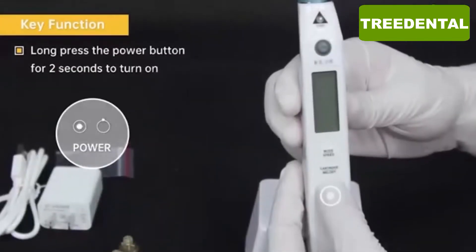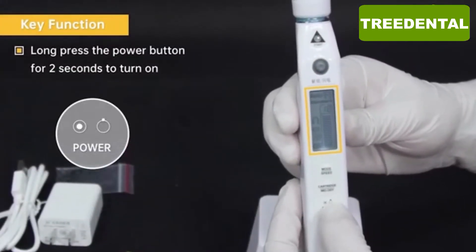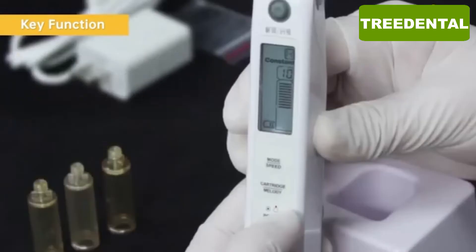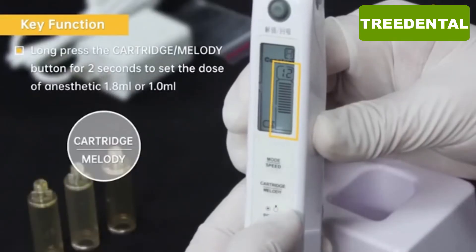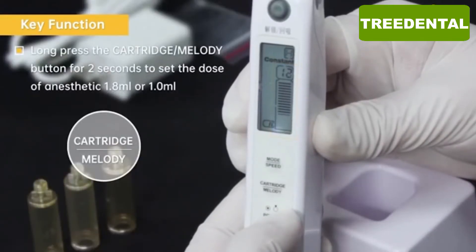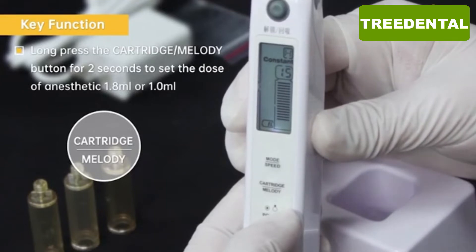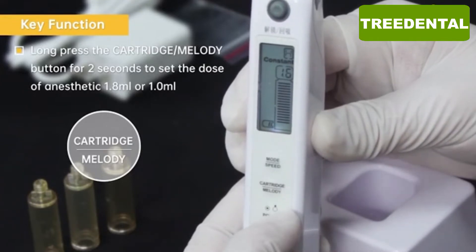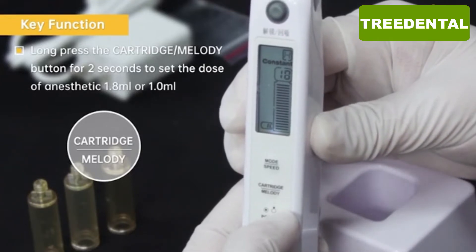Long press the power button for 2 seconds to turn on. Long press the cartridge melody button for 2 seconds to set the dose of anesthetic — 1.8 ml or 1 ml.